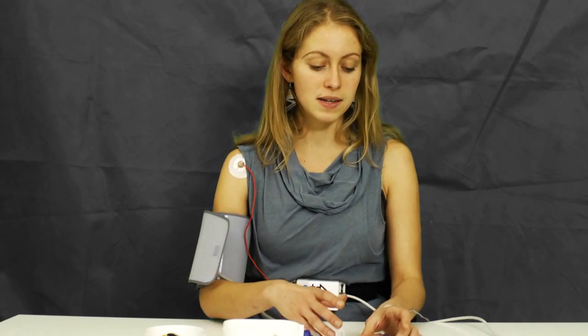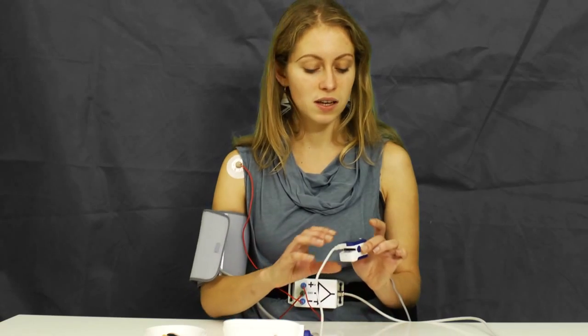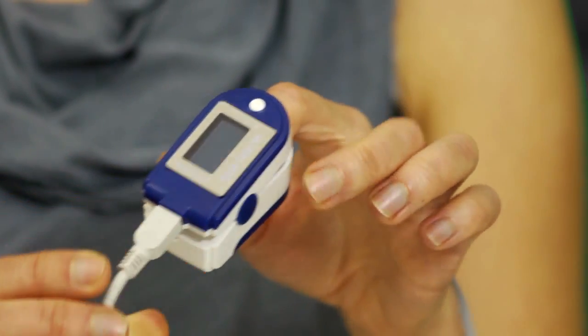Thirdly, pulse rate. We're going to measure pulse rate both with the ECG and the pulse oximeter to see which one yields the best results. I'm going to leave this pulse oximeter on my left finger throughout the whole process.